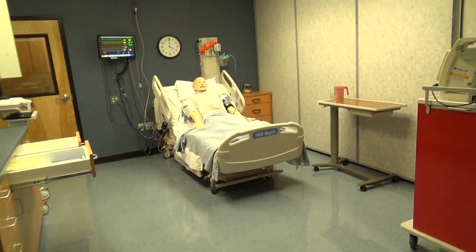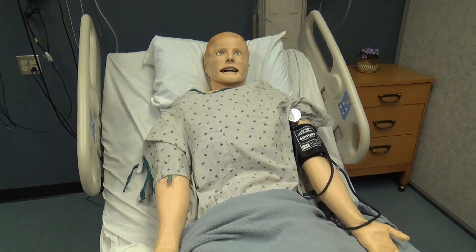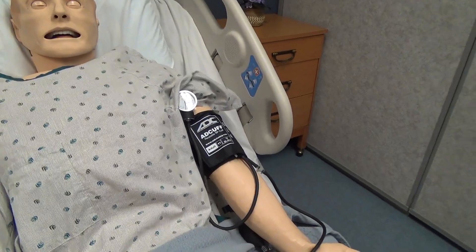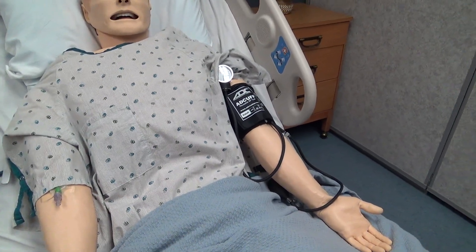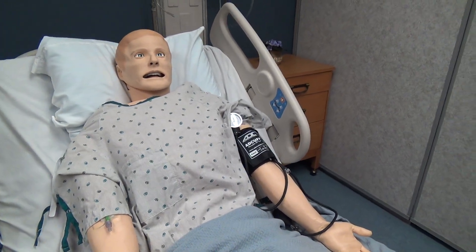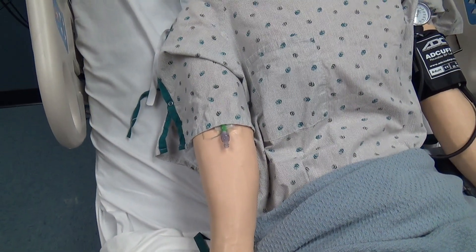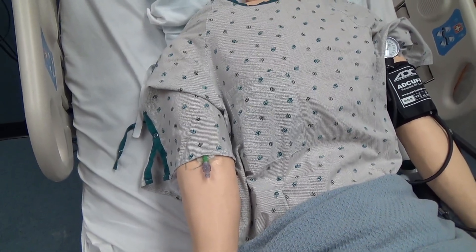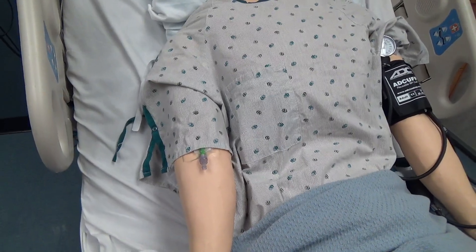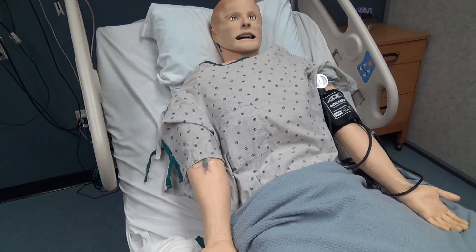Moving on in the room, we have your patient. You have a blood pressure cuff on the left arm. There is a green dot here to signal that that is the best spot to listen to the blood pressure. I do require you to find the blood pressure and come up with a value. In the right arm there is an IV catheter — it's 18 gauge and is right antecubital. If you have medications to give by IV means, such as morphine or Zofran, you can push your medications in the IV. It is set up to receive medications to make it as realistic as possible.